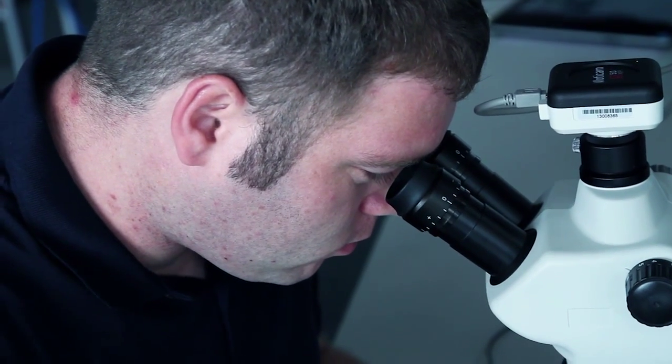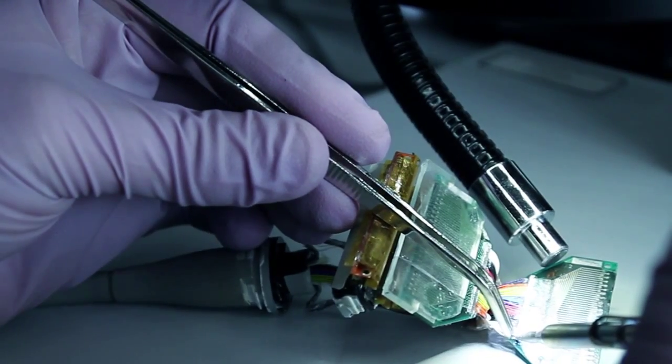We can help you detect even the smallest malfunctions before they turn into more complex issues.